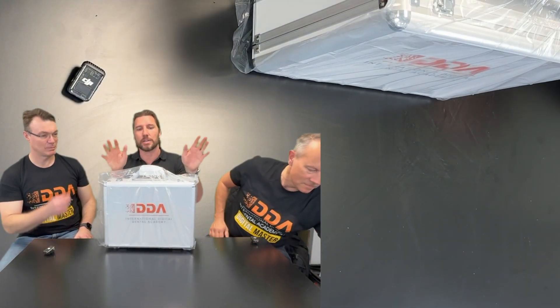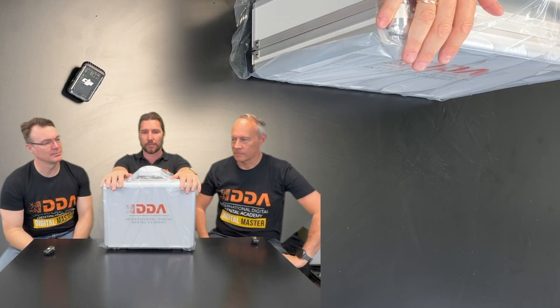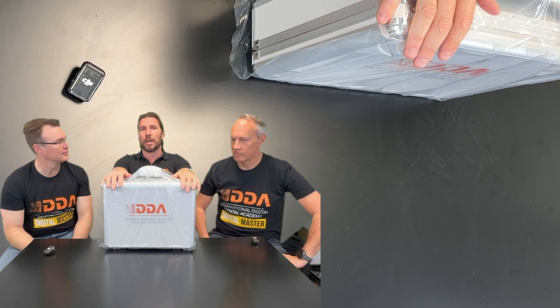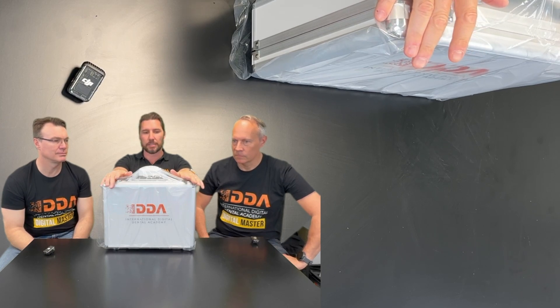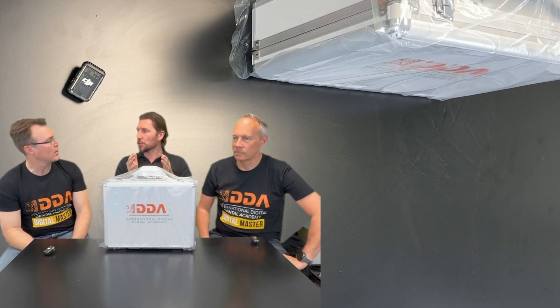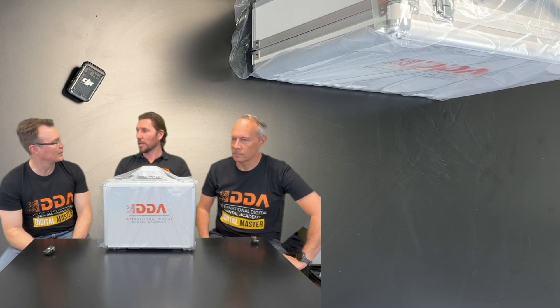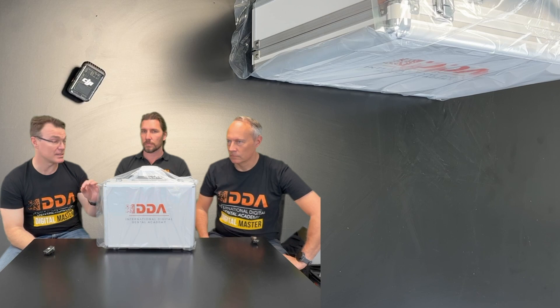One of the best things is we worked with companies on both hardware and software for a long time. We wanted a solution that would really work for the general dentist. This isn't designed to be the premium scanner for various different aspects of dentistry. This is just for the everyday dentist to digitize his workflow and make every aspect of dentistry easy. It's an entry level scanner with lots of functions — nothing wrong with the scanner. It's actually very good, especially for the price.